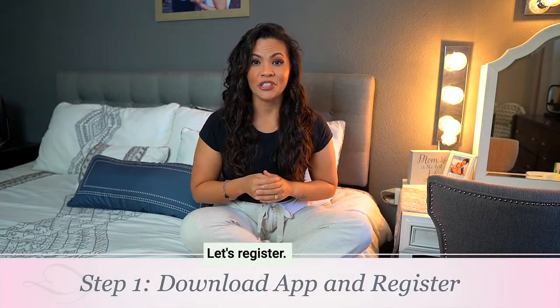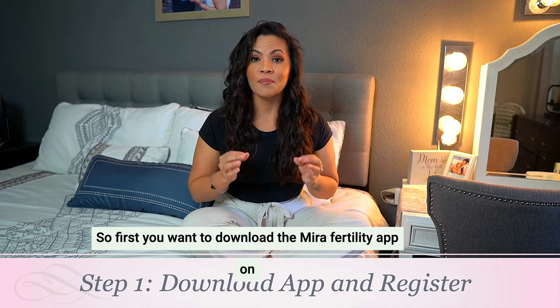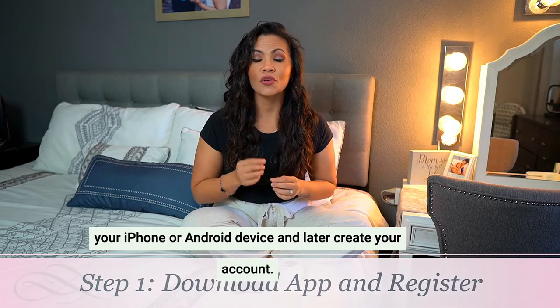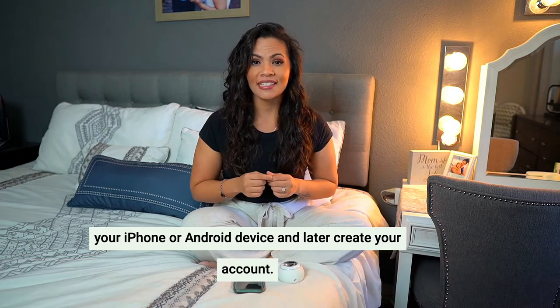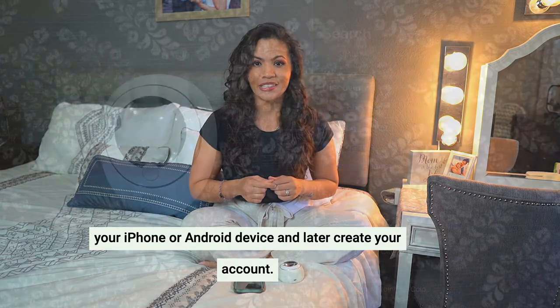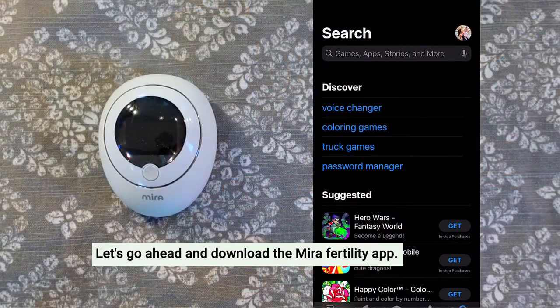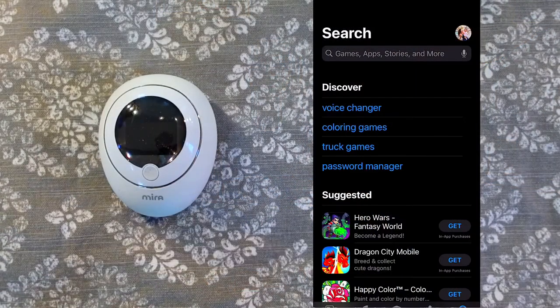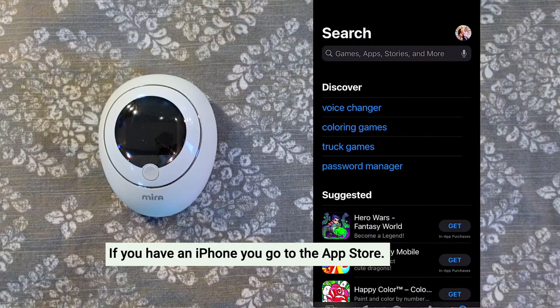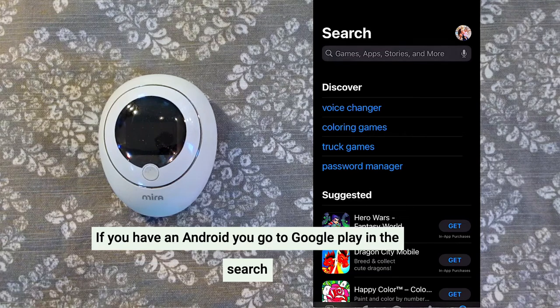Step one: let's register. First you want to download the Mira Fertility app on your iPhone or Android device and then create your account. Let's go ahead and download the Mira Fertility app. If you have an iPhone, you'll go to the App Store. If you have an Android, you'll go to Google Play.